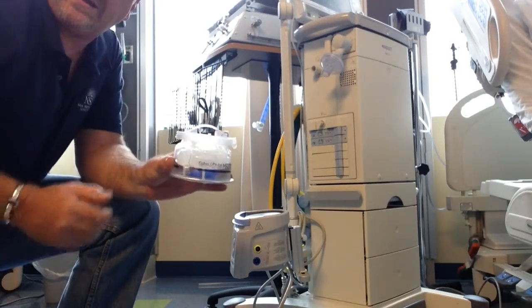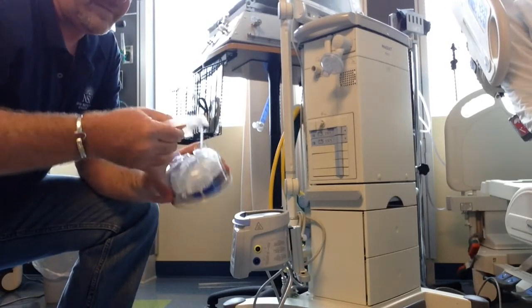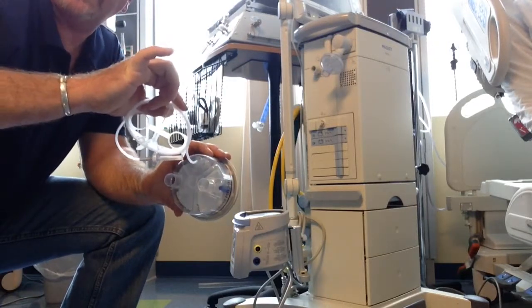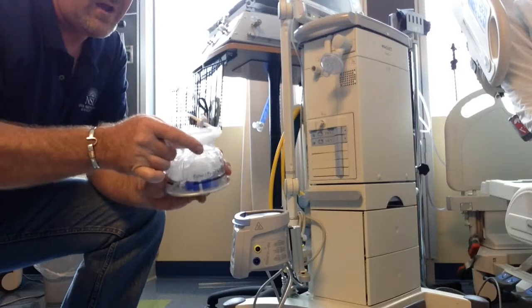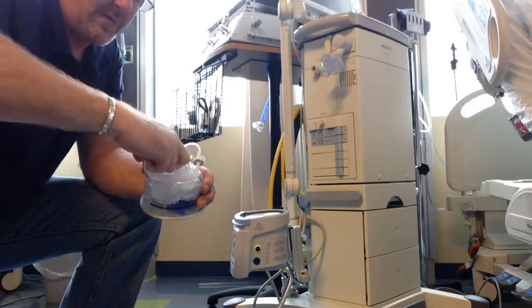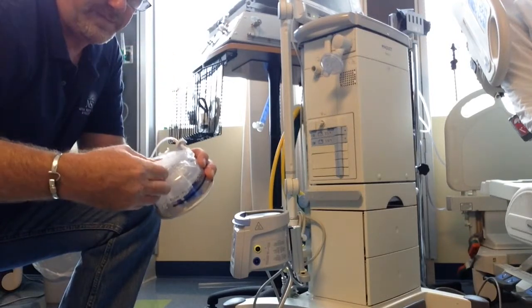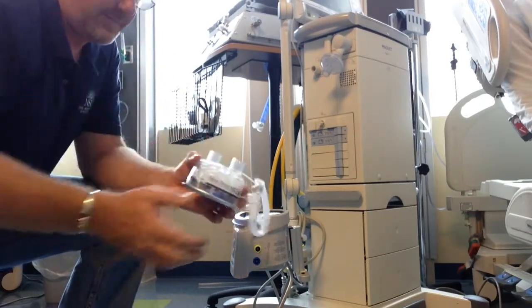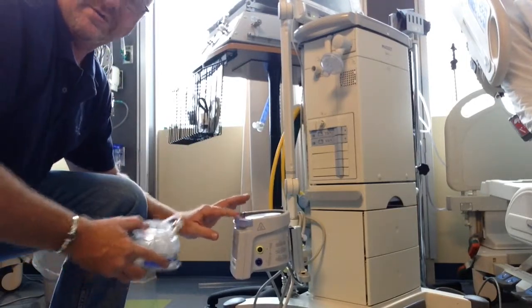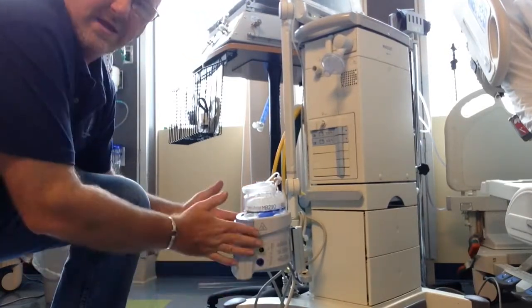This is the heating humidification chamber. It comes off and you unwind the hose here — this hose is your feed tube for your bag feed. First you'd pull the blue cap off, then take the chamber off and put it on the heater. The front part goes down, you push down, it clicks in — it's on.